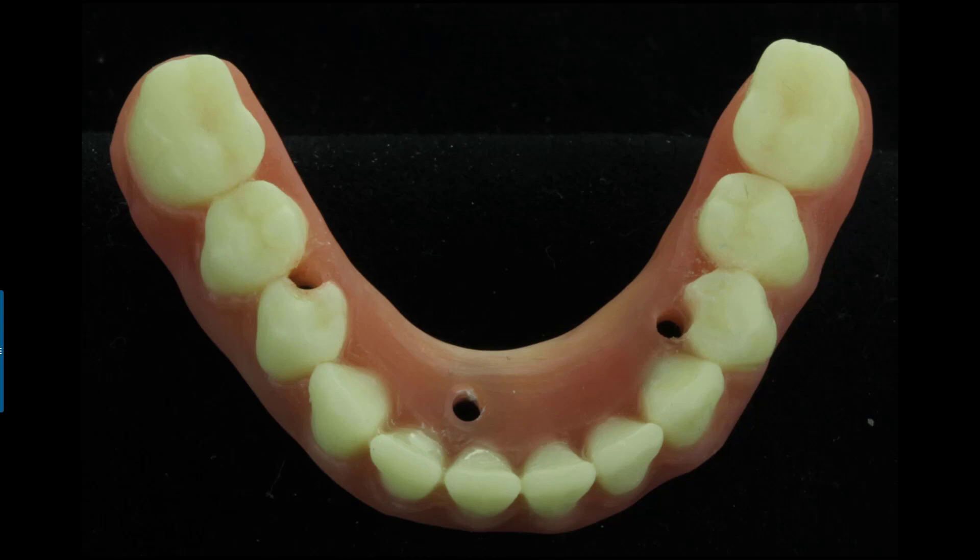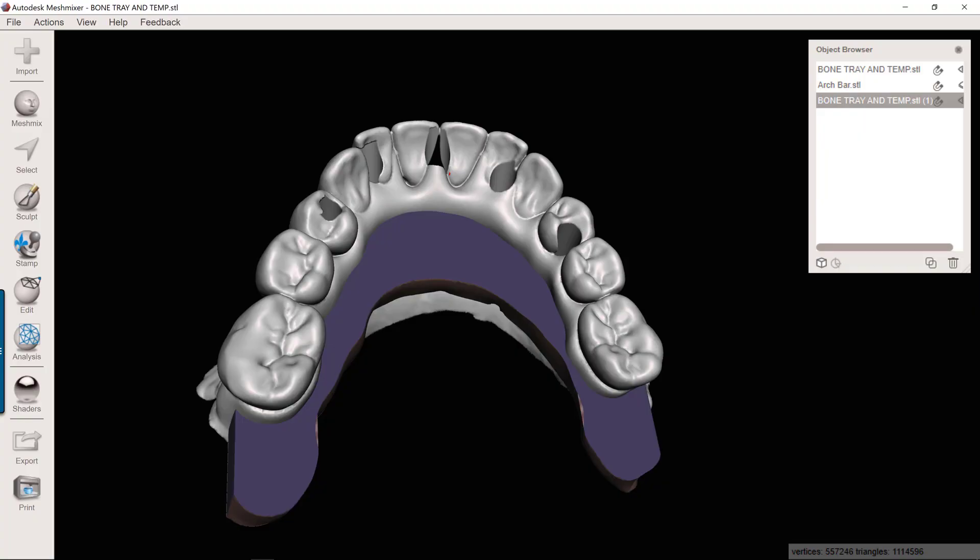This is going to be under about $100 or so to fabricate. These are really, really affordable to do. Now in the remainder of this video, I'm going to show you how you can somewhat digitize this technique so you get the best of both worlds. You get the digital speed, the precision, but you also get the cost-effectiveness of not having to have a mill. You can just do this with chairside tools, handpiece and such.